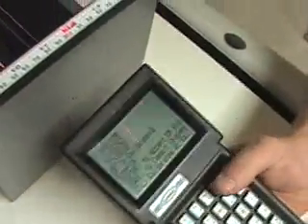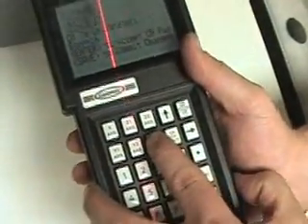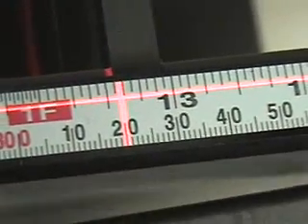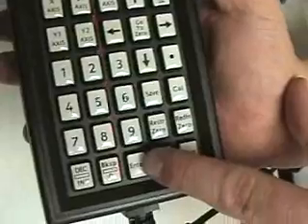Now we need to do the positive side of the ruler, the movements of the laser. To do that, use the up arrow to move to centimeter to calibrate, which should go to one. From zero, press up — it should go to 10. When you do that, if it's on 10 you're good; if not, you need to adjust it. To adjust it, the left arrow does the negative side. Hit that once, and you've made an adjustment — hit enter. Then go on to the next centimeter. It should go to 20 when you touch the up arrow. If it's off just a little bit, move it with the left arrow, then press enter.